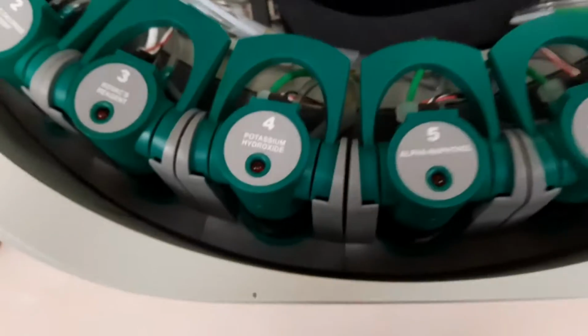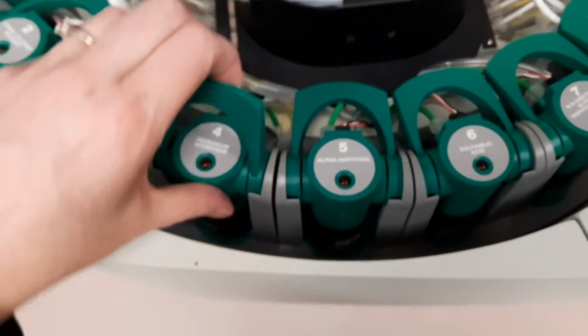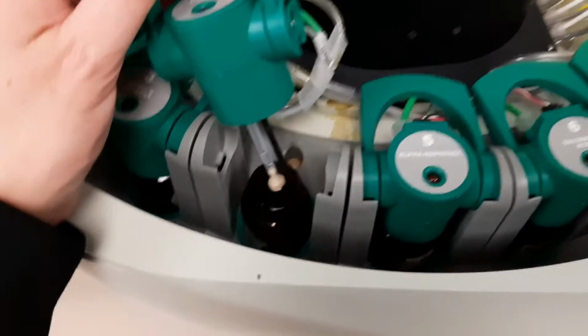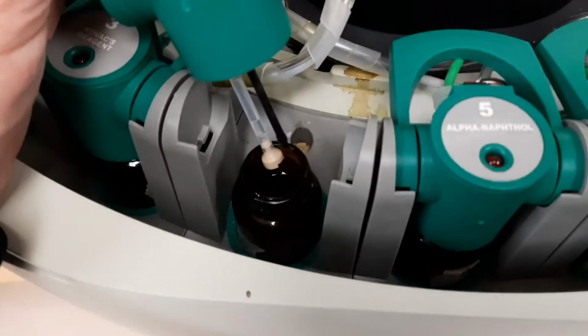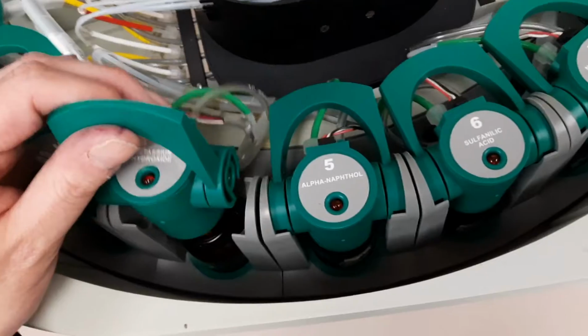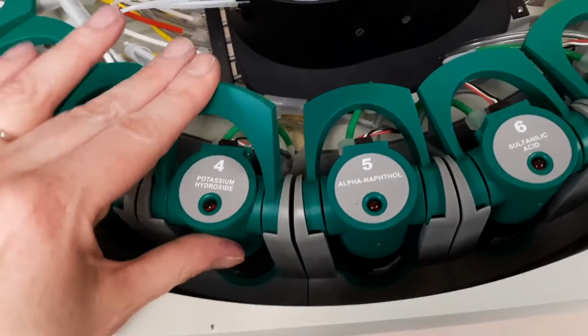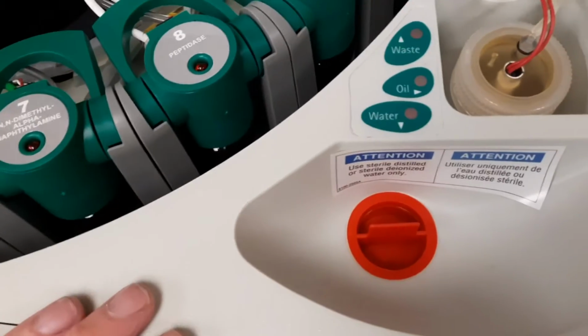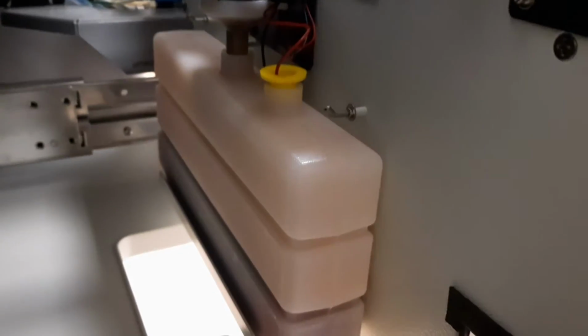The WalkAway analyzer is a fully automated instrument that incubates panels, automatically adds reagents when required, reads and interprets results, and prints results without operator intervention. Rapid fluorescent panels processed by the MicroScan system provide quick and accurate identification and susceptibility results for a wide range of aerobic bacteria.